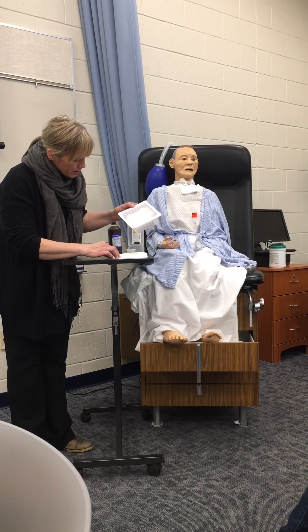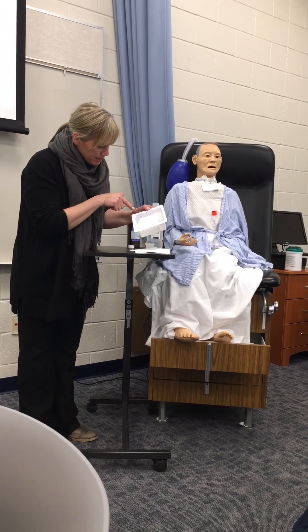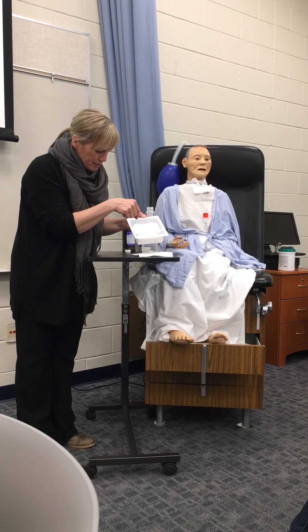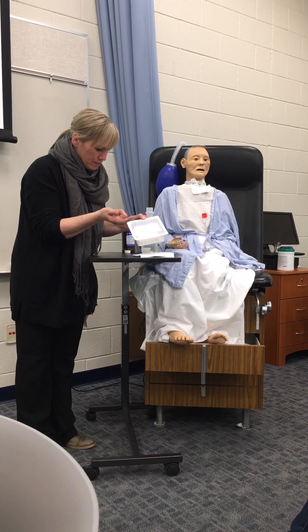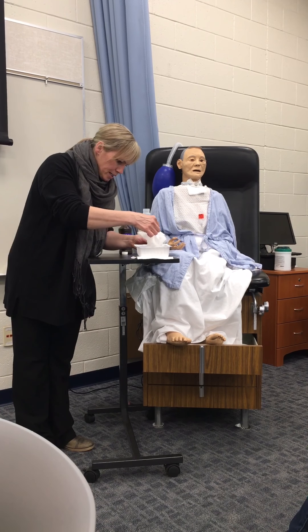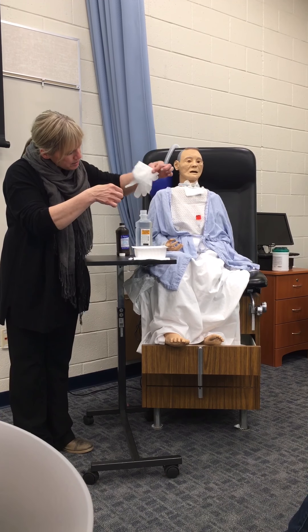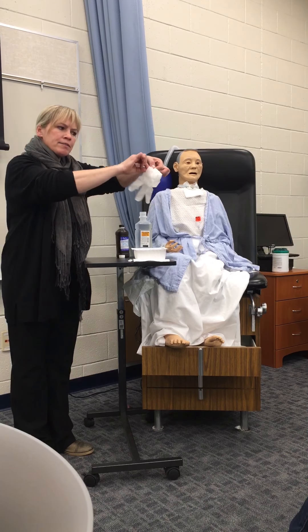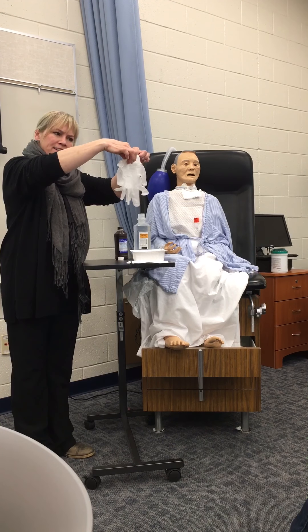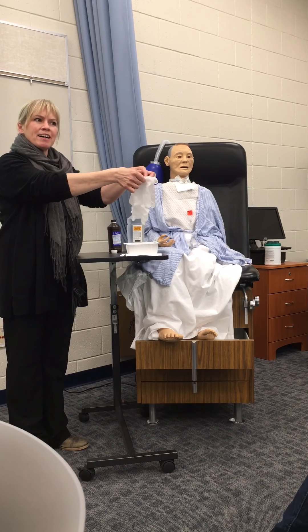This is always a question — where is the cuff on this? This is really a challenge. It's meant to be picked up like that, so I'll try it and see what happens. So, if I'm pulling here, what did I end up getting? Not the cuff. See how that isn't awful? Well, that was like — and this is a brand new kit, so it wasn't even cuffed.